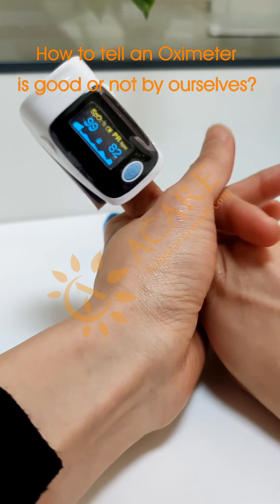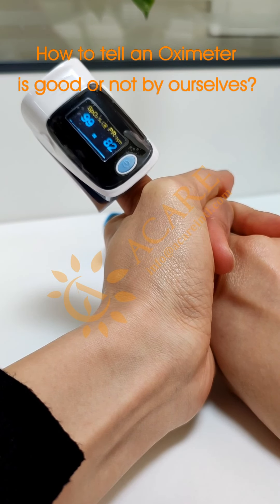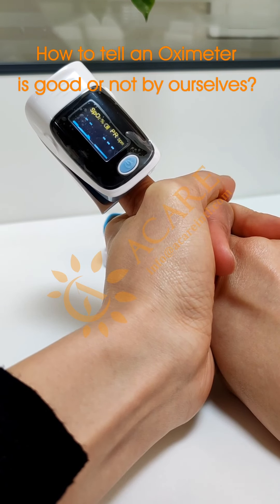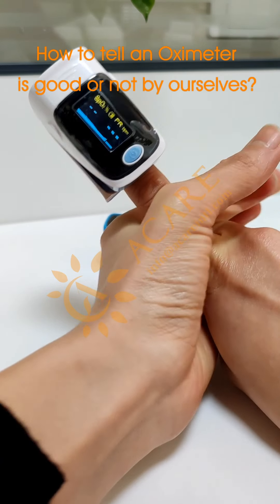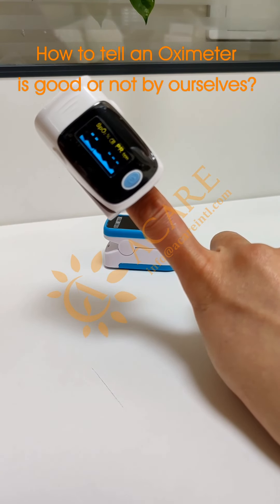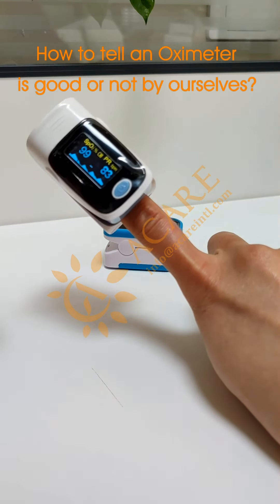Same — I will hold my test finger hard. It seems that the wave flow is getting more and more flat. And after a few seconds, we can't read the reading at all. When I release it, the waves came out again, and now the reading is normal.